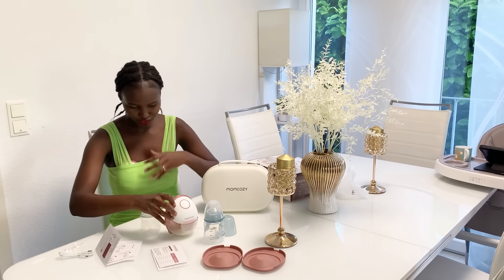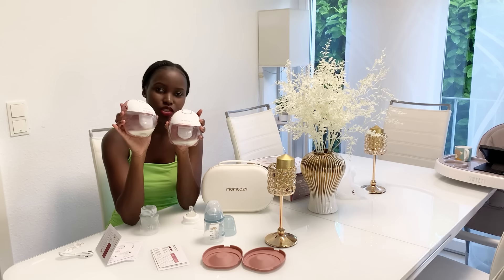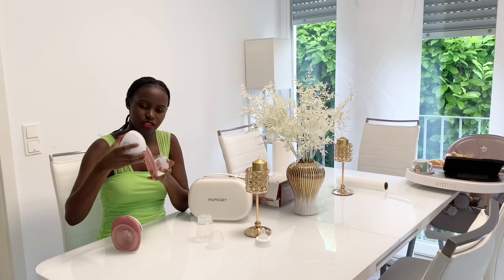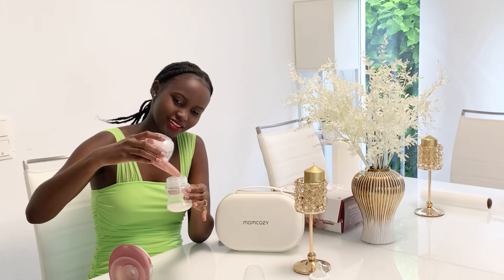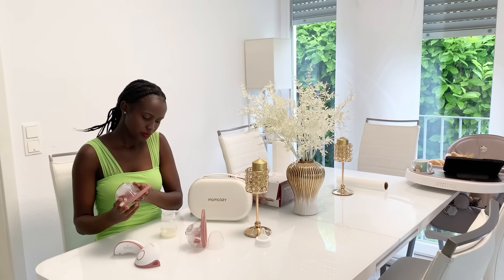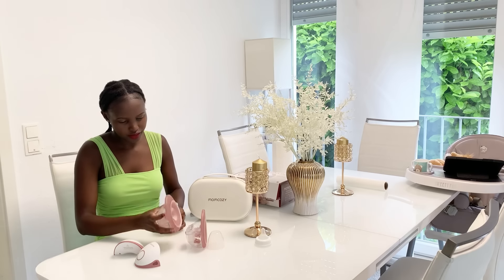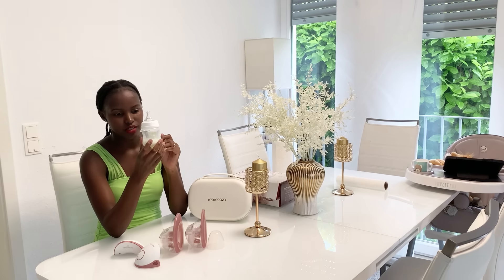That's enough milk for now — I only pumped for a few minutes. I don't have much milk on this other side but I hope you can see how much I pumped. I want to try feeding the baby now because he's fussy and hungry. I'll remove the upper part and pour the milk into the bottle. Wow, it's not so little — I pumped for only three minutes and this is roughly 60 ml. So if you want more milk you just pump for longer.